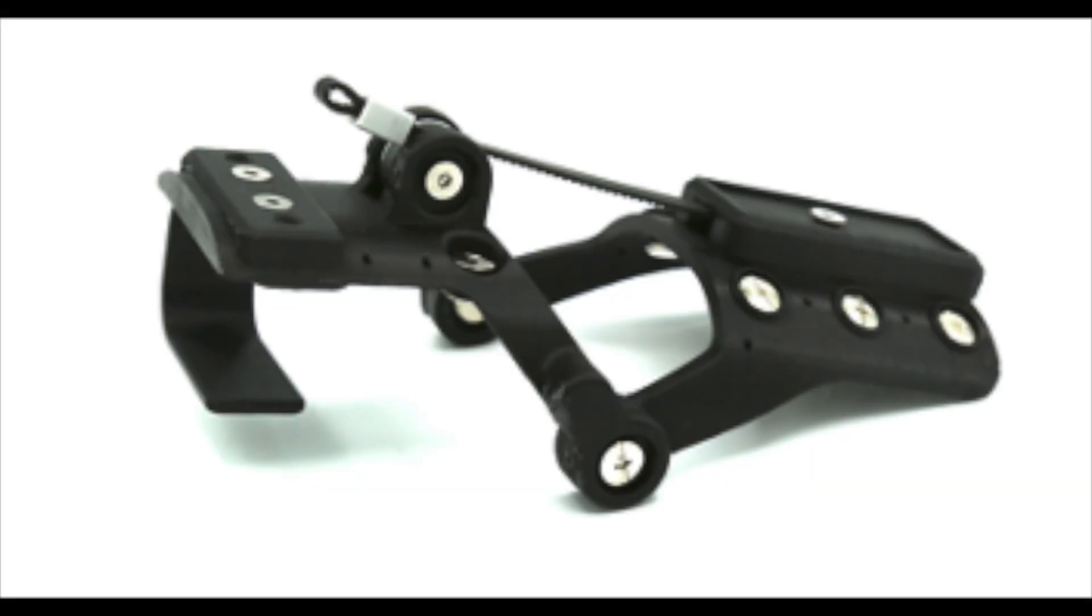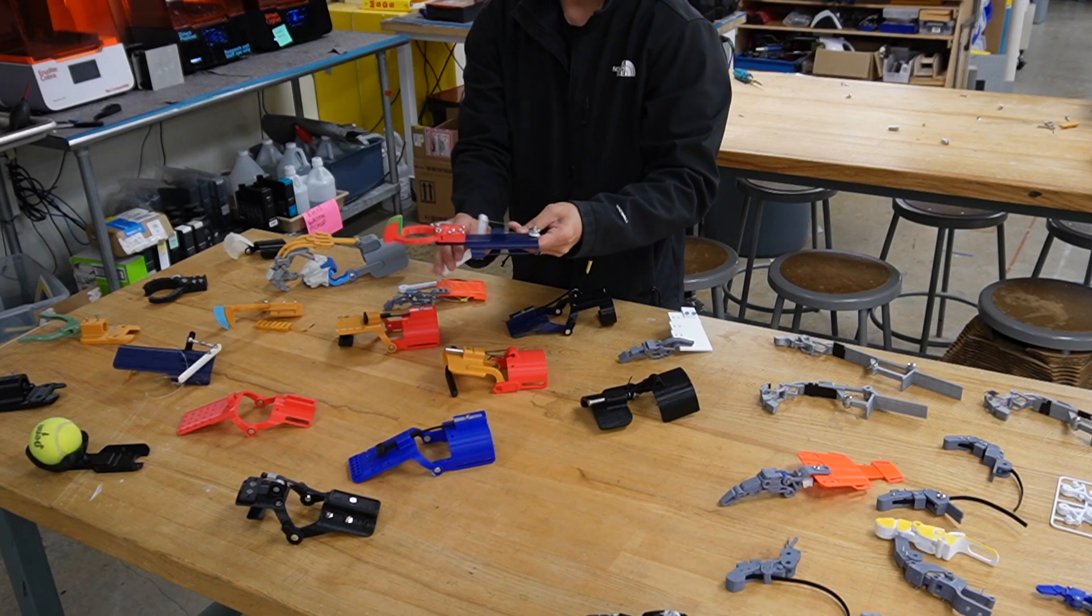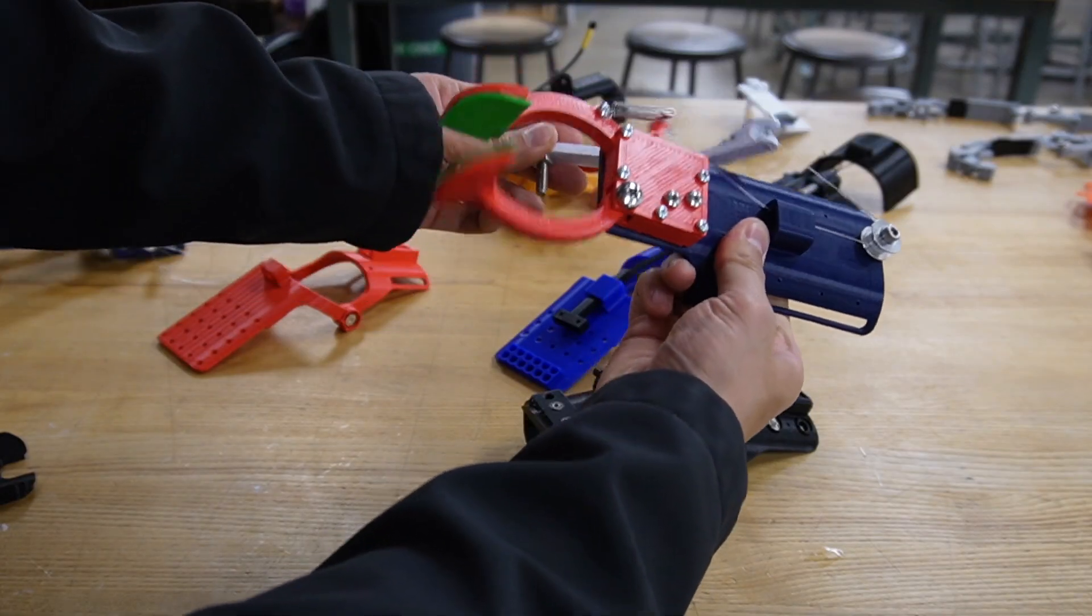As we continue to prioritize function and adaptability for various users, our journey towards revolutionizing body part prosthetics progresses.